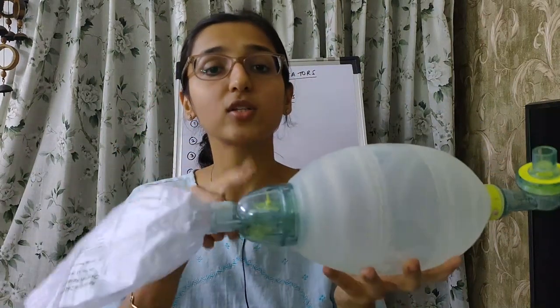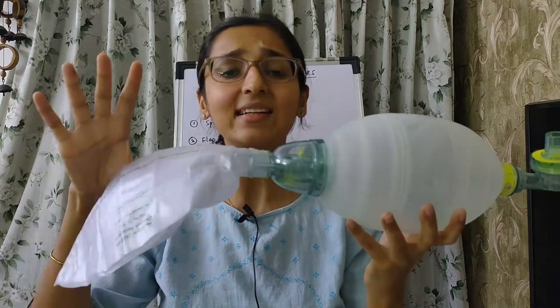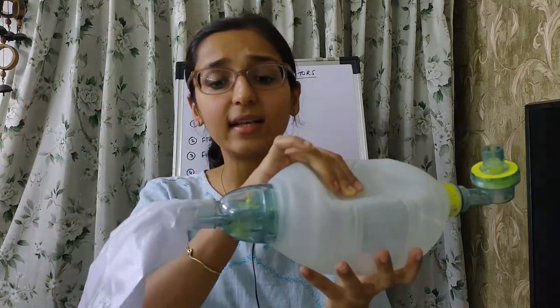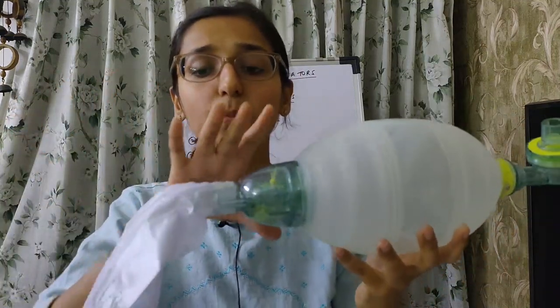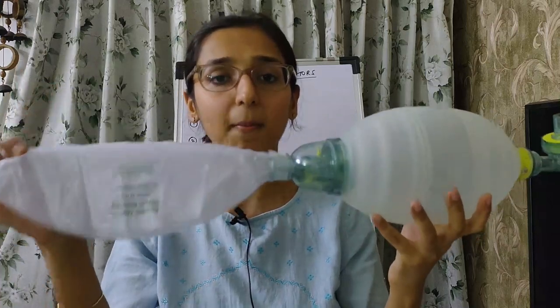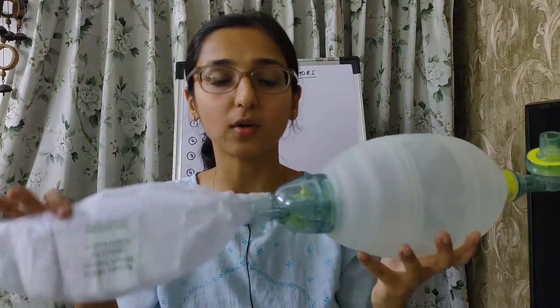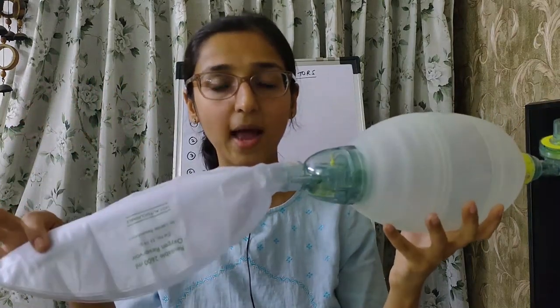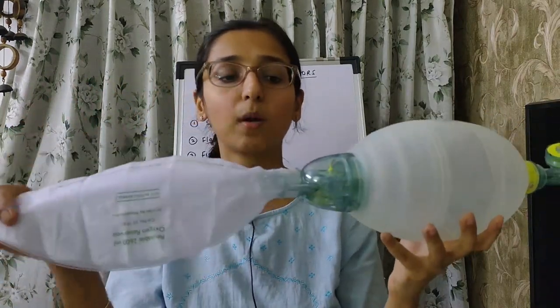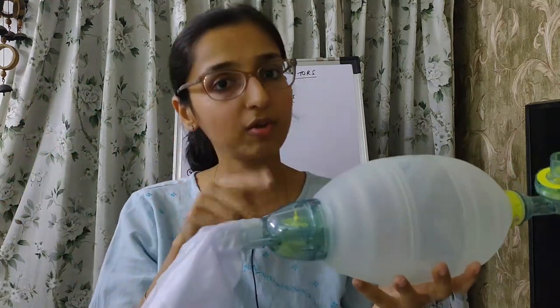The second flap valve prevents excessive pressure from rising in the reservoir bag by venting out excess oxygen to the atmosphere, thereby preventing over-inflation of the reservoir bag.